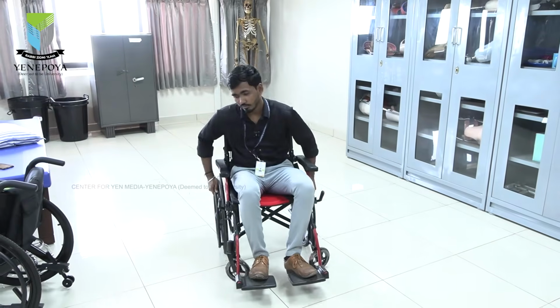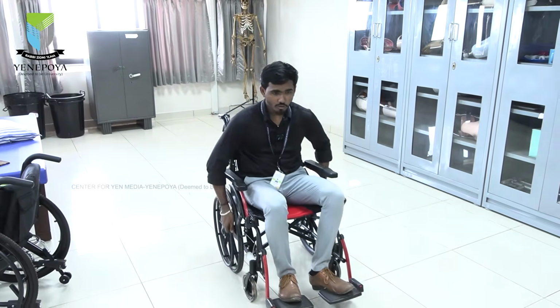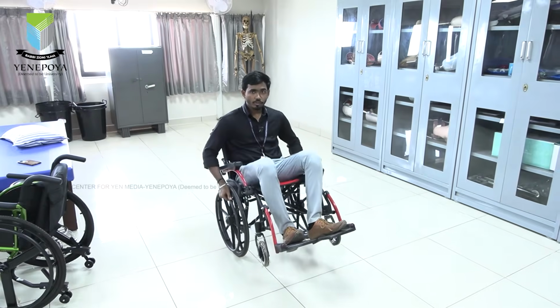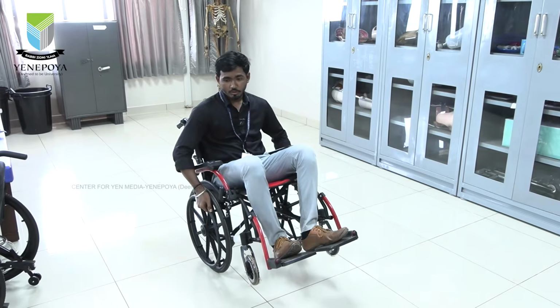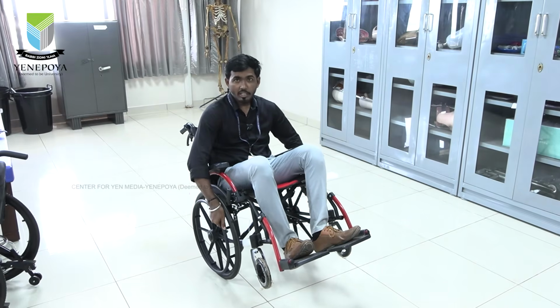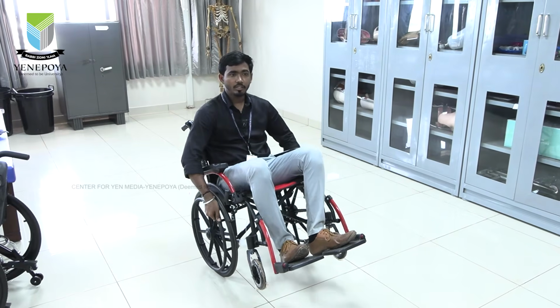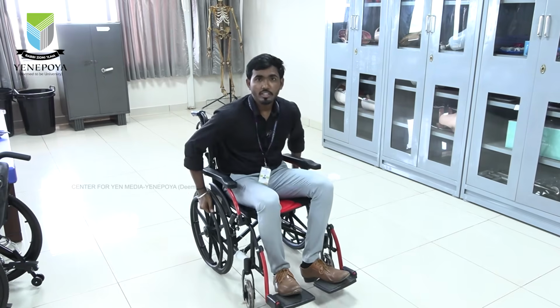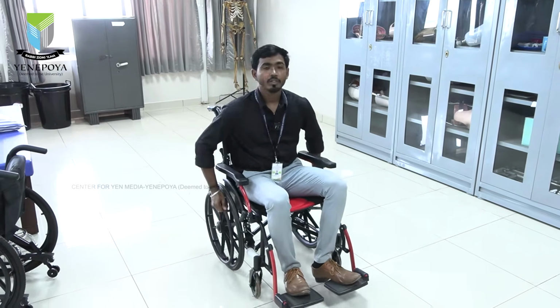Okay. So while we are talking about how to do this wheelie, previously I talked about how to do it also, but I missed out a few things. When we are doing this wheelie and it goes up, there is one mechanism everybody has to learn. When I am pushing my wrist towards the front, ultimately my wheelchair goes back. So if you want to come a little bit front, I have to push it back. That's why most people will fall while doing this.